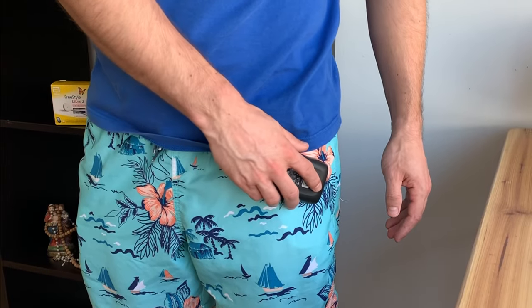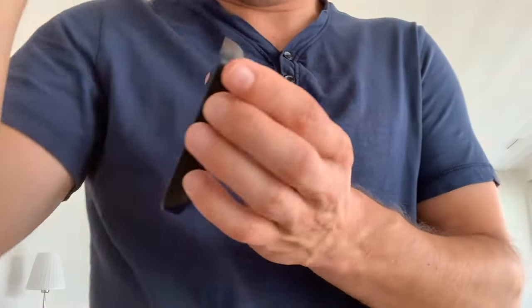Category four is comfort, and again I'm happy to report that the sensor didn't bother me at all in my thigh — I actually liked it a little bit better than my arm. I found it easy and very comfortable to scan, especially with the phone in my pocket. I don't even take out the phone or do any kind of self-hugging that I used to do with the arm, so it's more natural and more discreet. It is also a bit easier to hide the sensor on the thigh, especially on the inner side. My skin on my thigh is not as sensitive as my skin on my back arm, and I had no skin irritation or allergy.